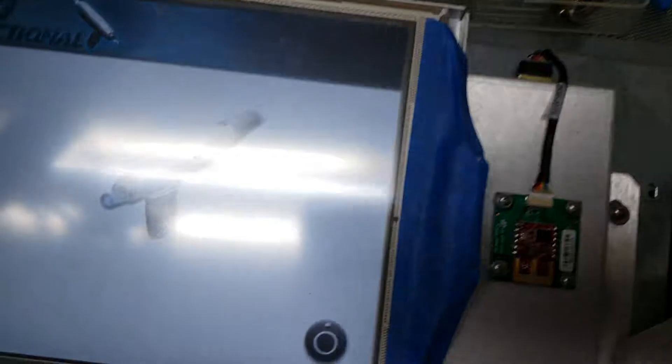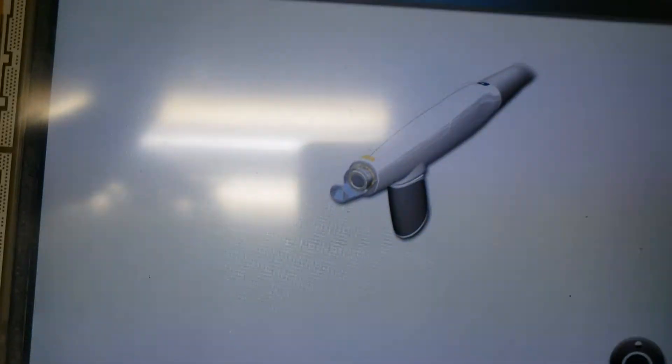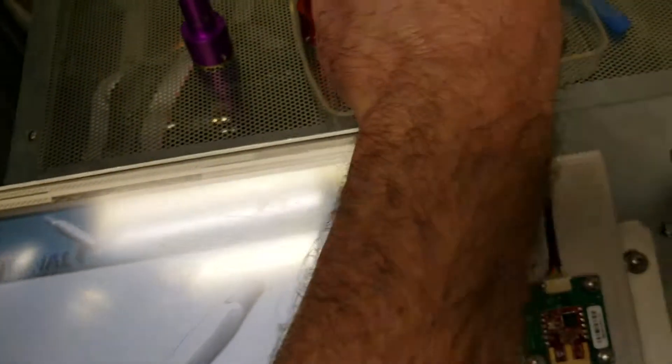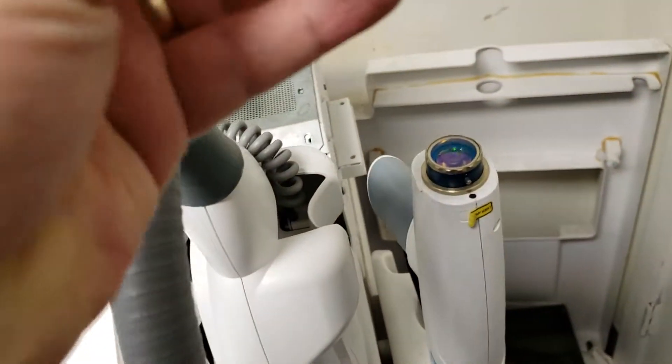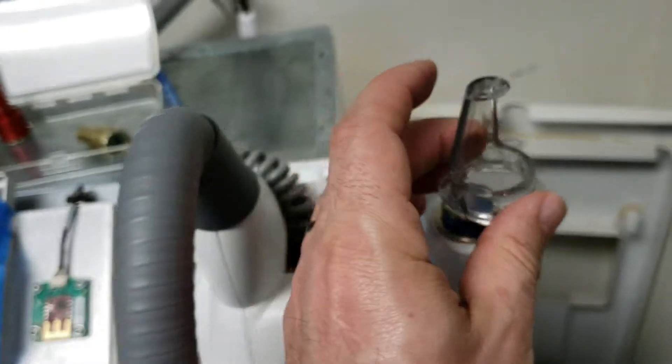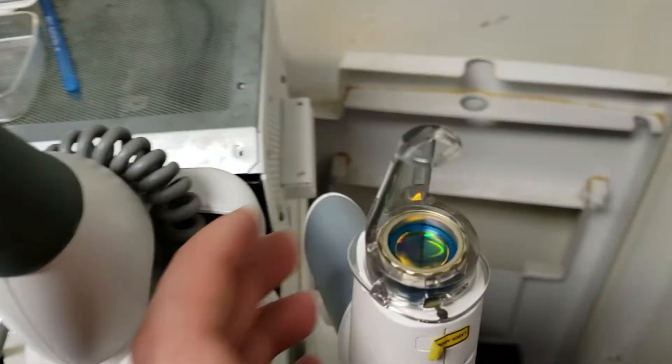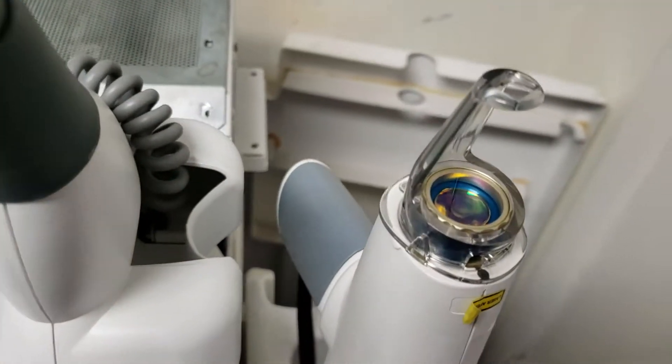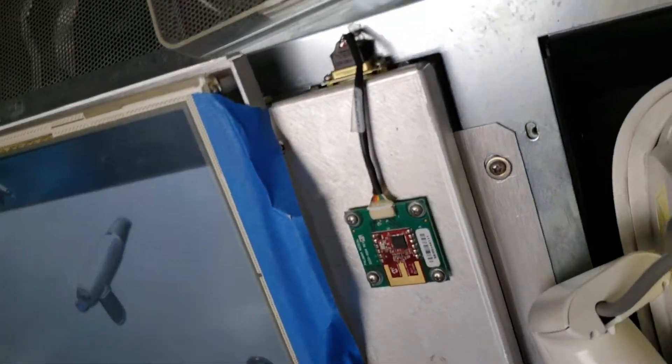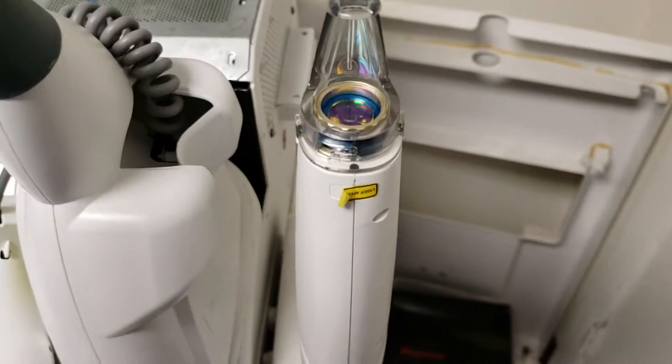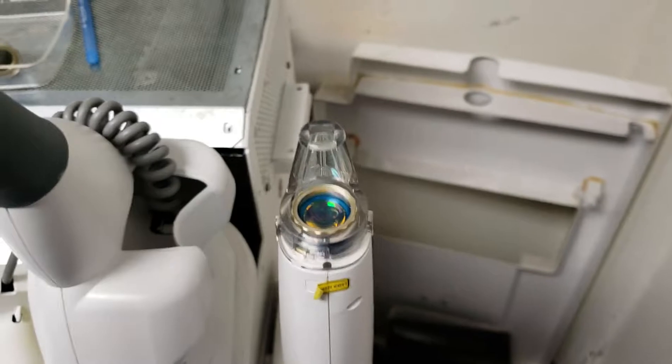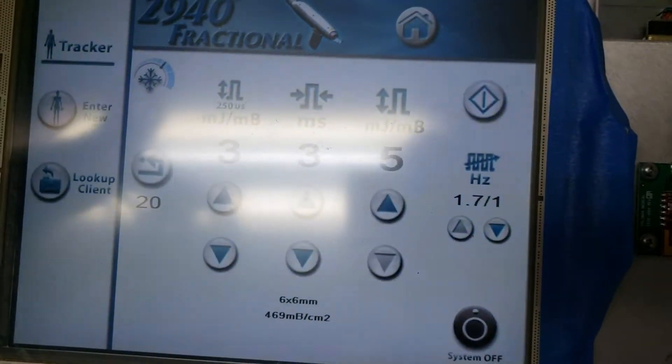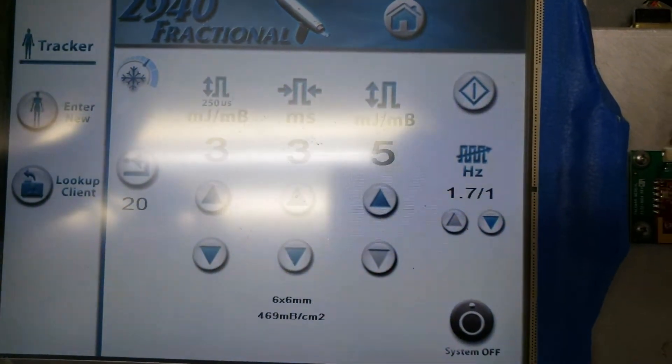Then it's going to ask you to put the plastic tip. The plastic tip goes with the body to the bottom, as you can see here. Then you just lock it. Once it's locked, you are ready to push.